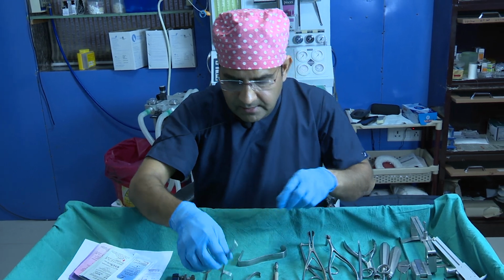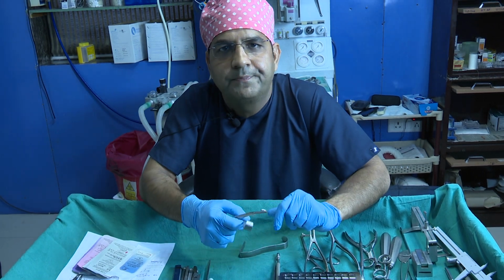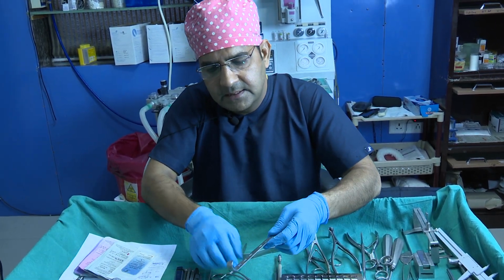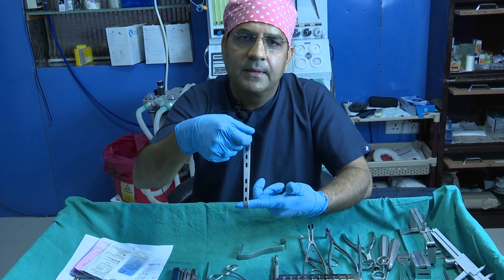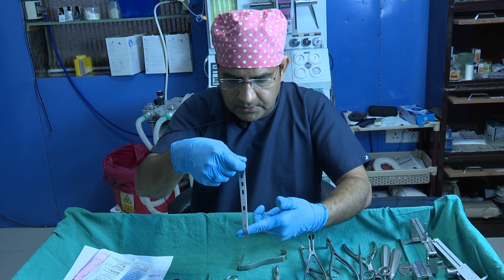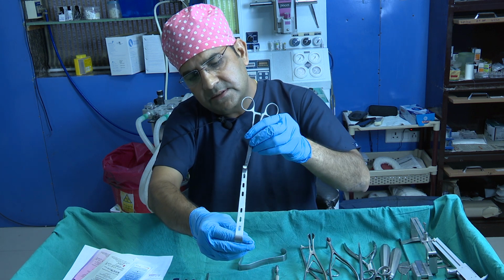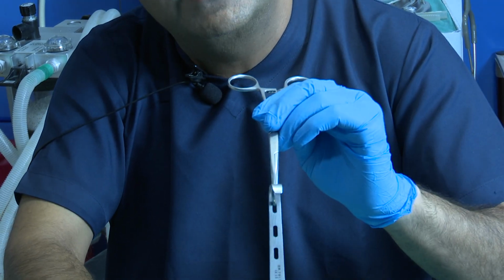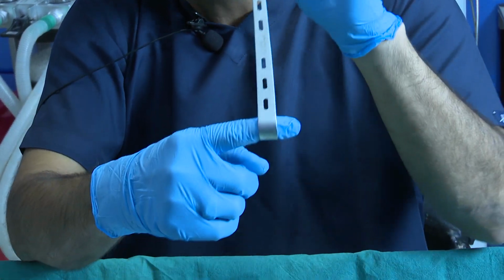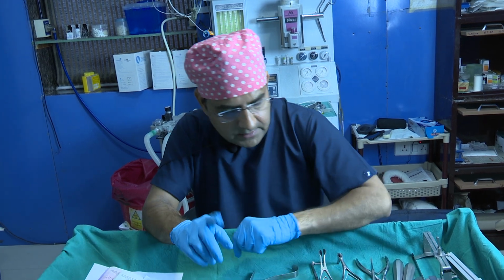Another good instrument we have is this one, because usually when we lift up the soft tissue envelope, one person always has to hold it with an operating retractor, and it is very difficult to hold. So with this instrument, you just pass it like this, and then we pass it into a slot in the towel, and it continuously self-retains and holds the soft tissue envelope wherever you need, according to the good exposure. So these are good instruments for exposure of the soft tissue envelope.